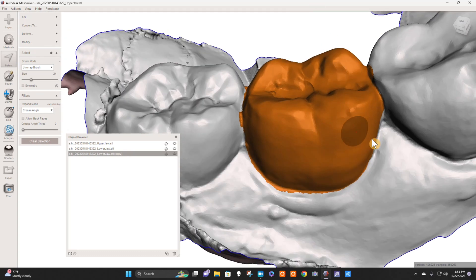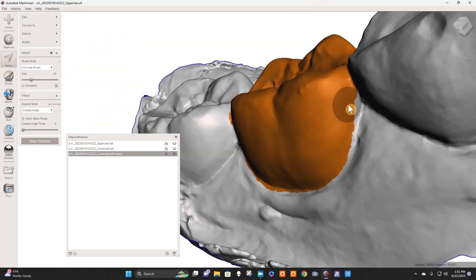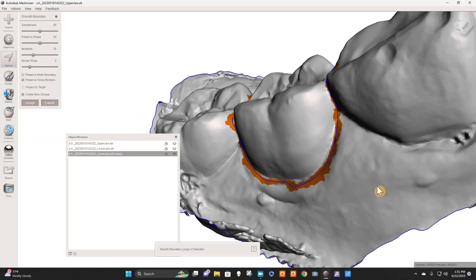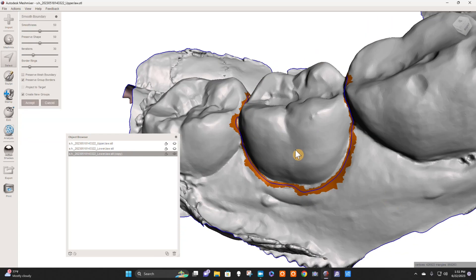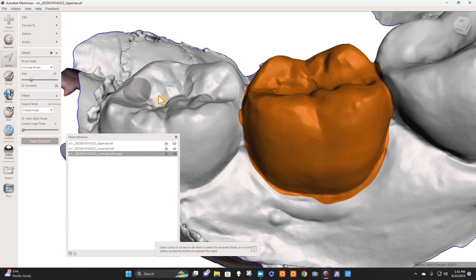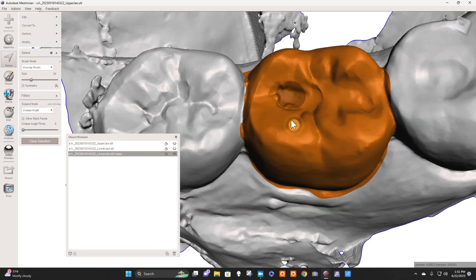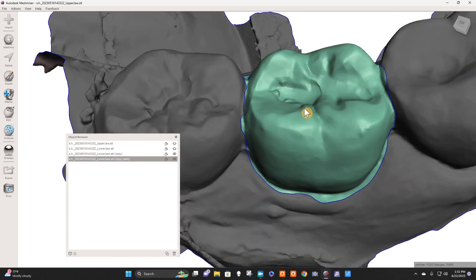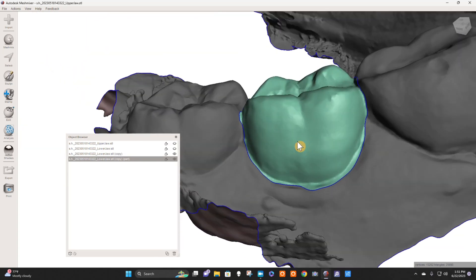I'm going to hit this area right here. I'm going to hit B as in void, and that's going to create a smooth border for me. If it doesn't, it means you have a hole in your orange somewhere. I'm going to accept that, and then I'm going to hit Y as in yellow. That's going to give me that tooth.